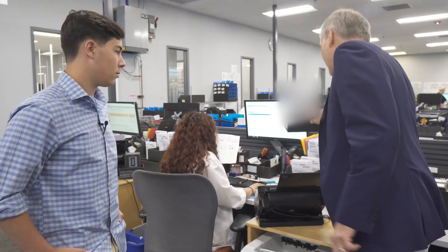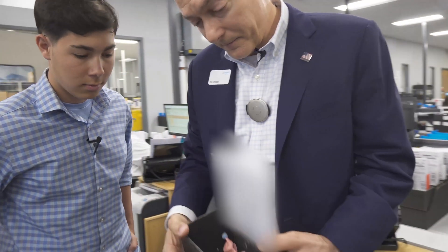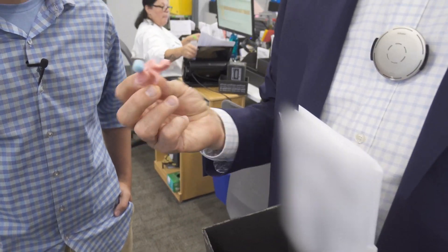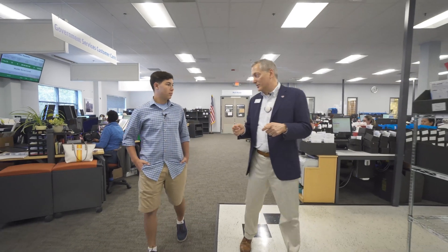This is what we call order entry. They're taking the information that the audiologist has sent us for the order and entering it into our manufacturing system — our SAP system. That's the software we run our business on. What we're getting sent is a set of ear impressions. This is the patient's impression for this particular order. The first step for a new custom product is to scan those ear impressions.